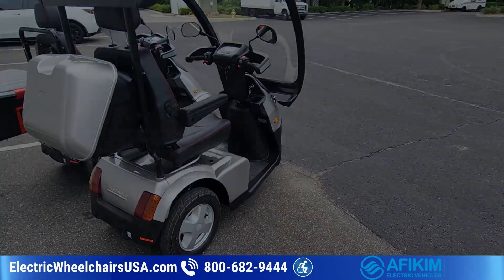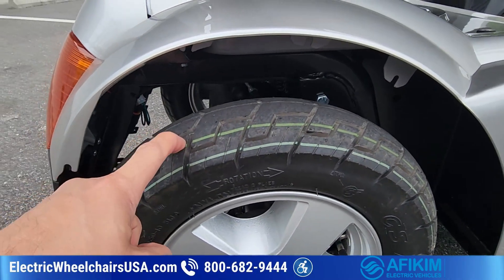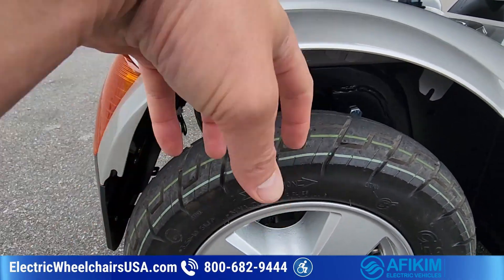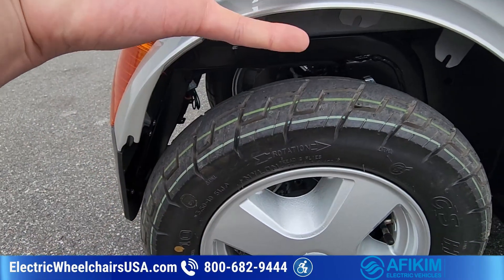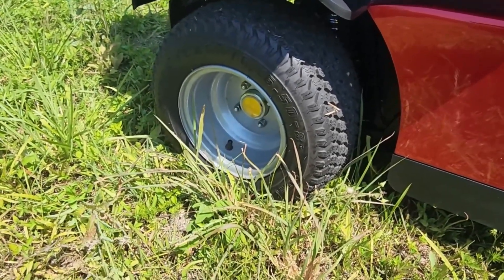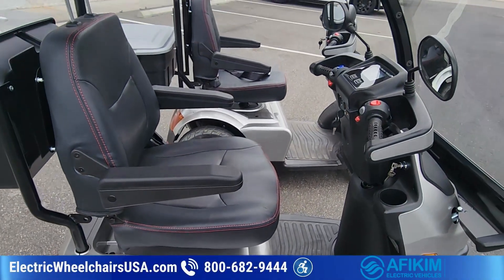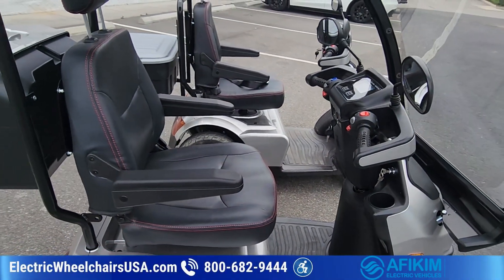You can also add golf tires to both scooters. The standard tire is four inches wide; the golf tire is eight inches wide. You might want the golf tires for more traction, like if you're frequently riding on grassy terrain.